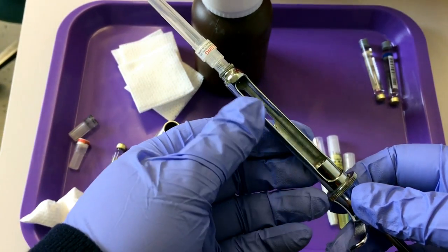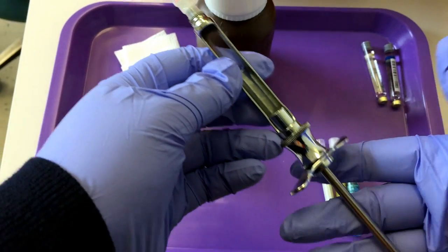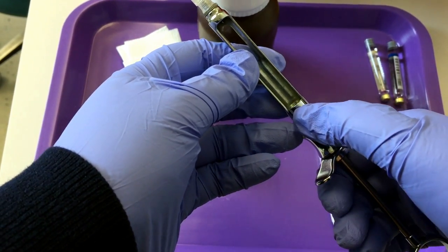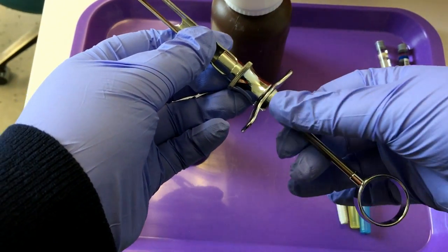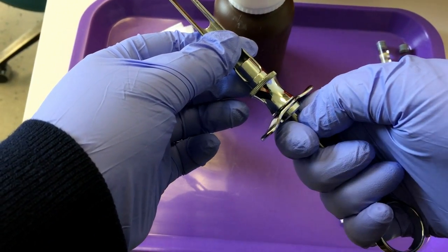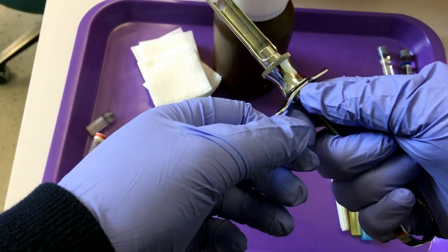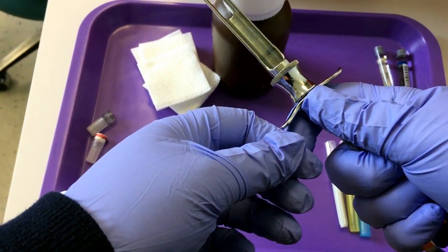Now we can insert our carpule. What we have to do is make this metal cylinder disappear so there's room. To do that, you have to grasp the piston in your fist and then push up with your thumb and finger.